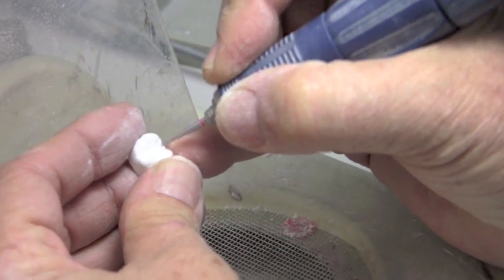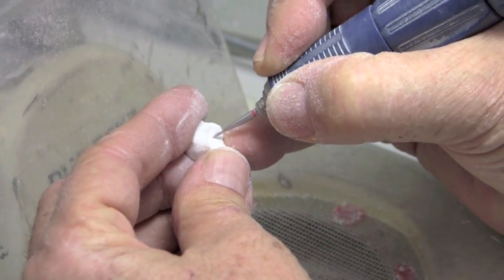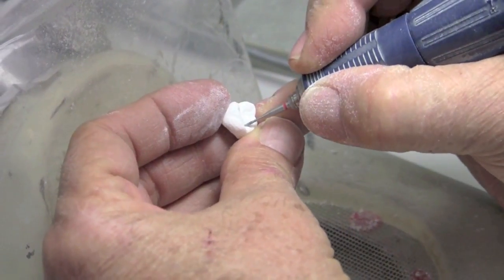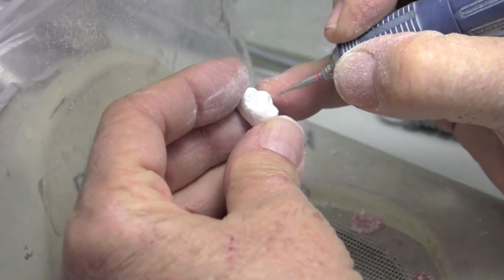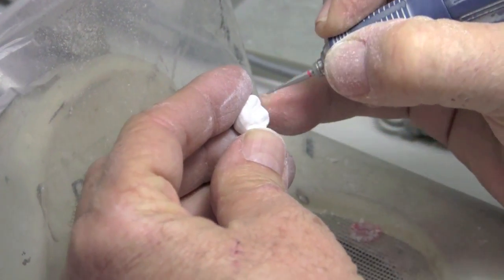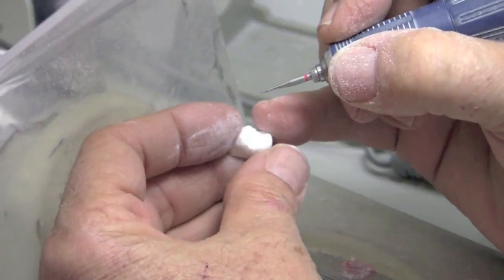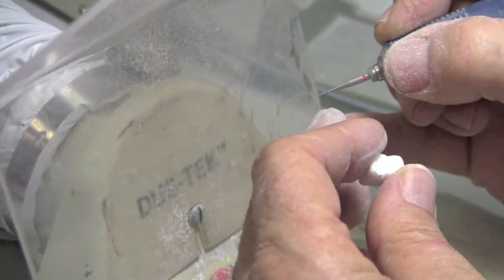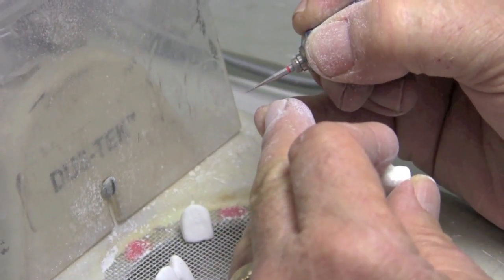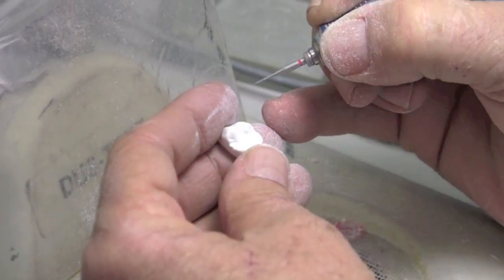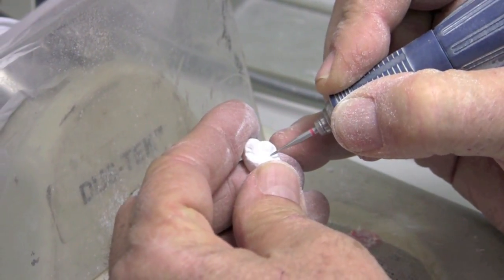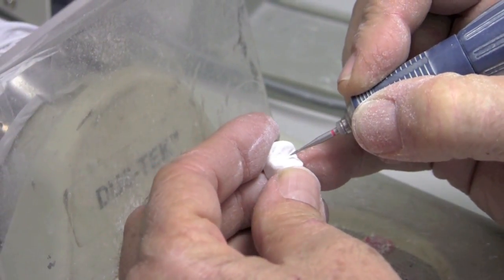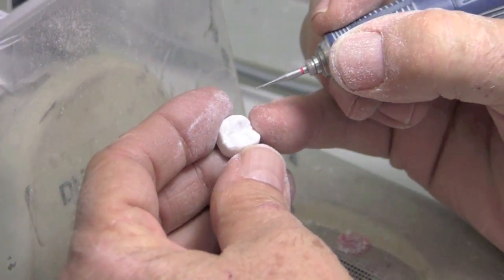It's just this little bit of crispness that you can add in these grooves really does, at post-sinter, give us a much more natural look. And as you know, when you have a little pit, it collects stain and makes a natural, realistic looking brown or ochre stained pit. I will do my developmental grooves. And I like this instrument because it's super pointy, but it has, it gets thicker as we go. So it contours the edges of the sides of the grooves sort of naturally and nicely without having to go back and do anything besides sort of follow the pattern.